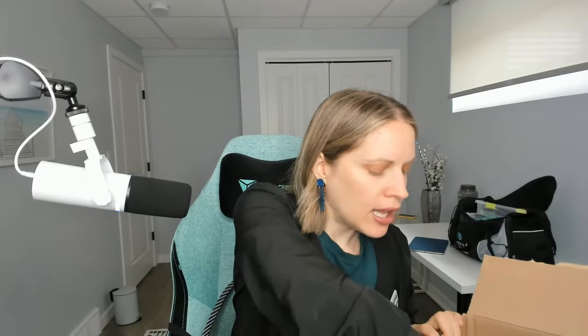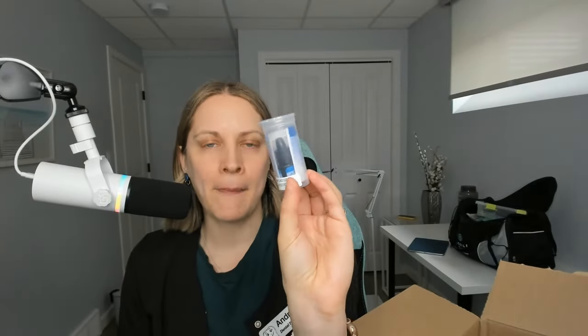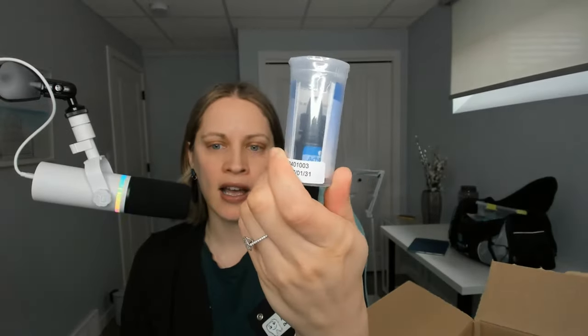So I got some of those tabs. Another one is silver diamine fluoride — a must have. Apply a little drop on the patient's cavity, or where you suspect they have a cavity, and this will hopefully help to arrest the cavity and even reverse it. I use this on my own teeth every six months. I have a lot of pit and fissures where there's always stain — a little sticky. I apply this on, and at my next checkup it's not sticky anymore. So I apply this on a regular basis. I love it.